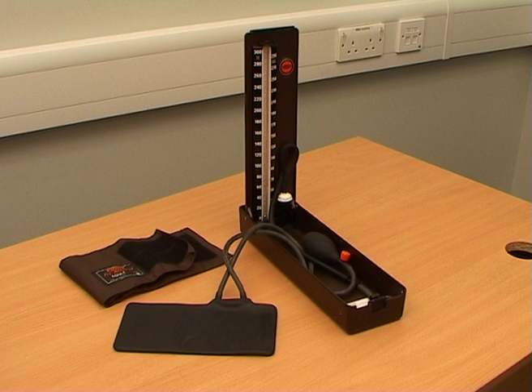This is an introduction into the use of basic diagnostic equipment which can be commonly found in the clinical setting. For the examination of the cardiovascular system, I shall describe the use of the stethoscope and the sphygmomanometer.